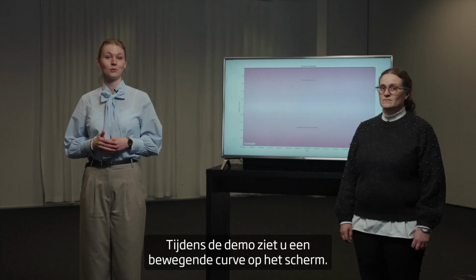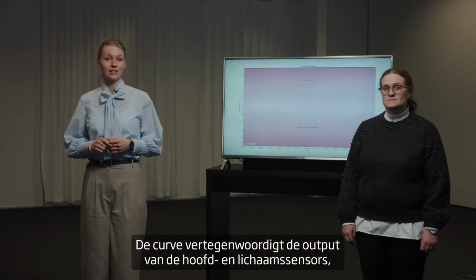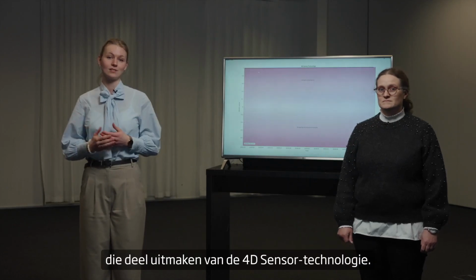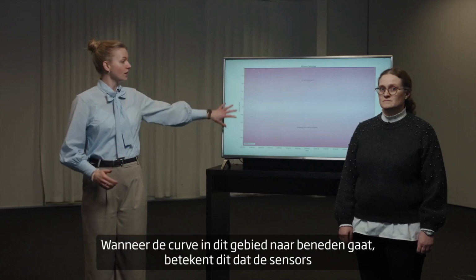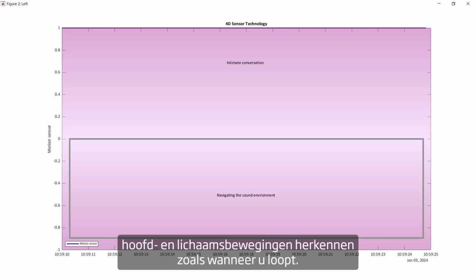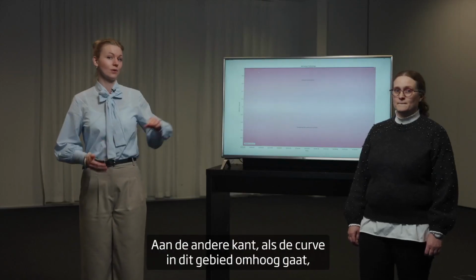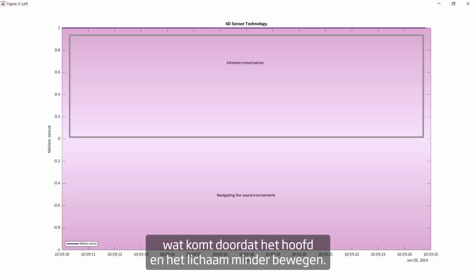During the demo, you will see a moving curve on this screen. The curve represents the output from the head and body sensors, which is part of 4D sensor technology. When the curve is down in this area, it means that the sensors recognize head and body movement, like when you're walking. On the other hand, when the curve is up in this area, it means that the sensors recognize less movement, corresponding to the head and body being more still.